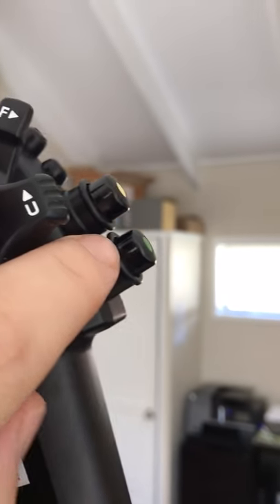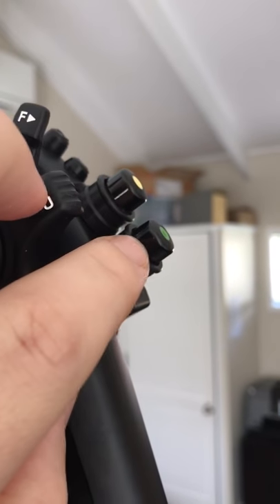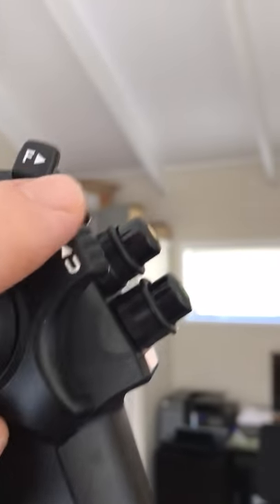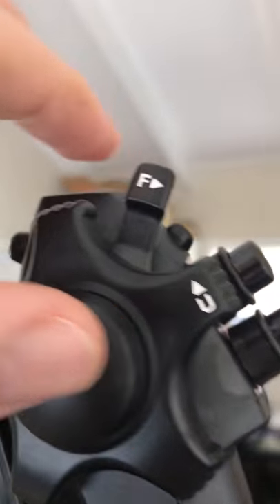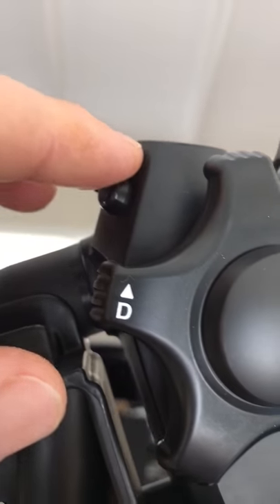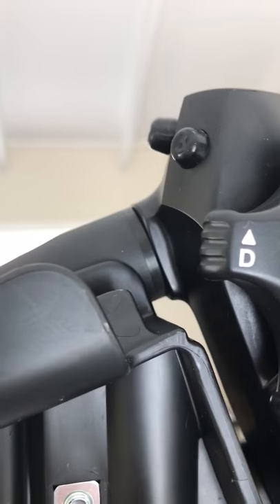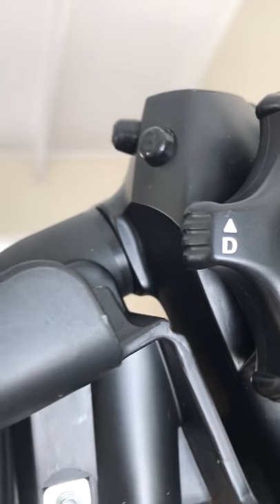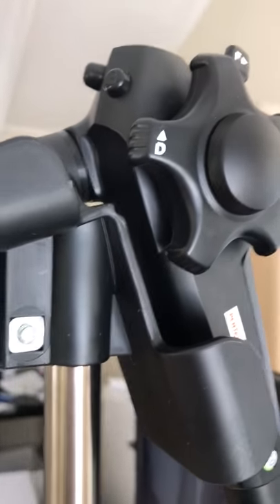What we have here are two buttons — one and two — for air and water and suction. We've also got four control buttons — one, two, three, four — used for taking an image, enhancing, putting this into chromo endoscopy, digital zoom, and a few other options.